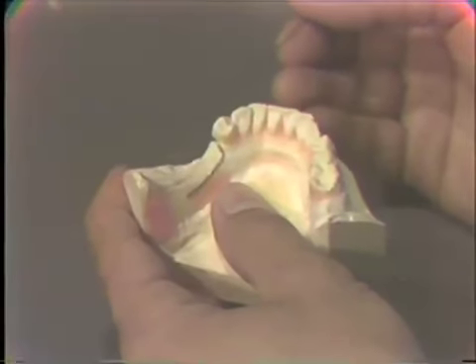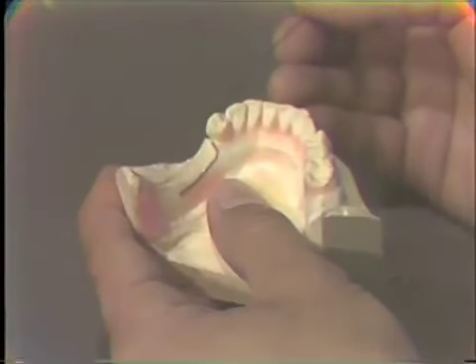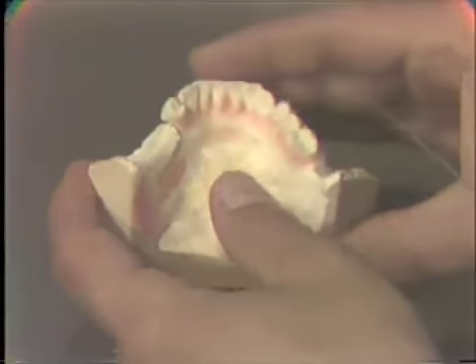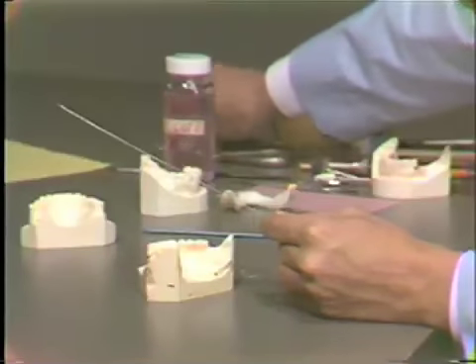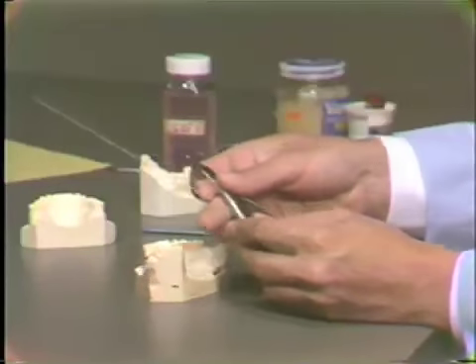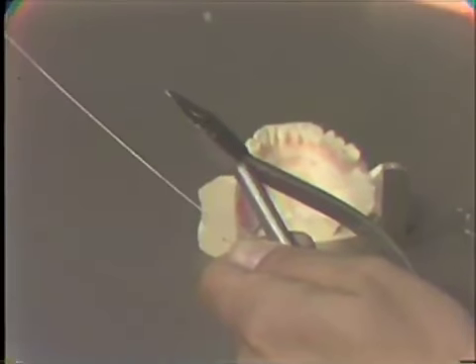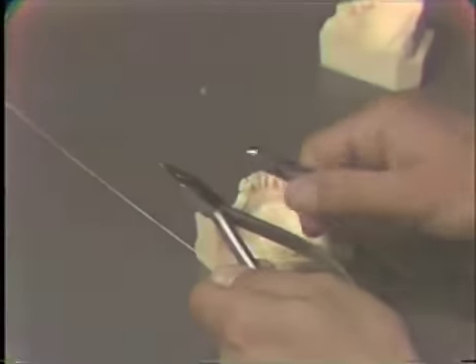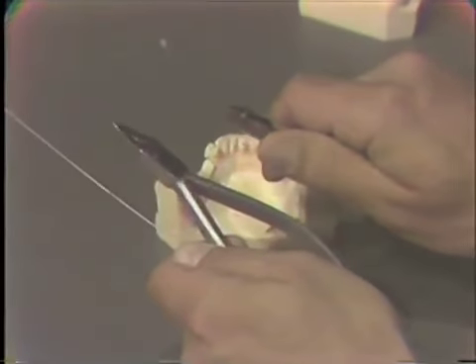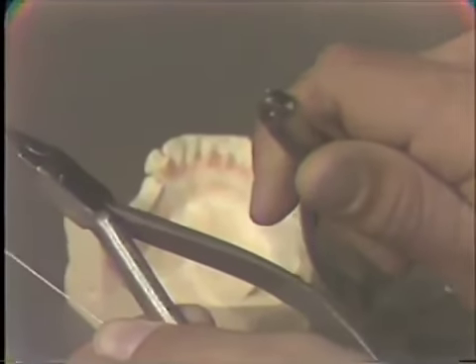Paper clips will do if you have nothing else handy. But we would do this with the pliers that we characteristically use in partial denture: the 118 plier or the 200 plier, which is commonly called a three-pronged plier. You see the three prongs on the end of it, used for making curves in wire.